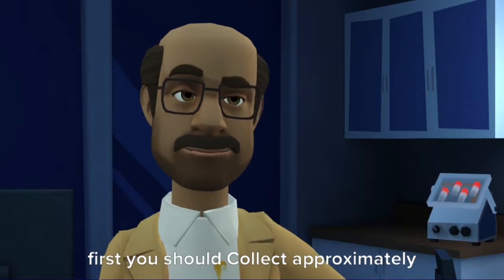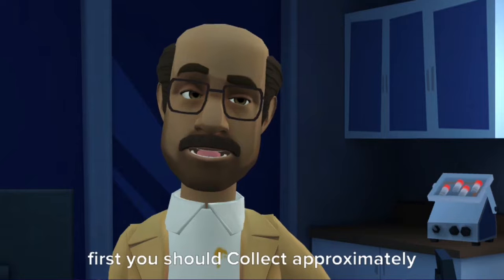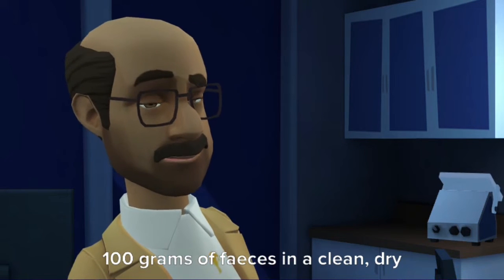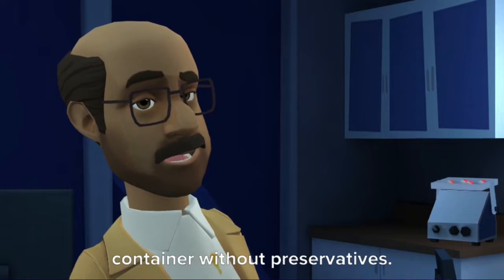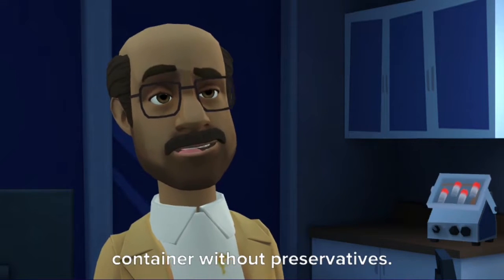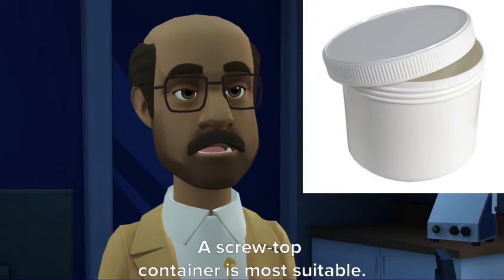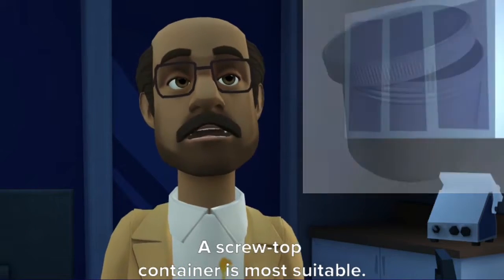First, you should collect approximately 100 grams of feces in a clean, dry container without preservatives. A screw-top container is most suitable.